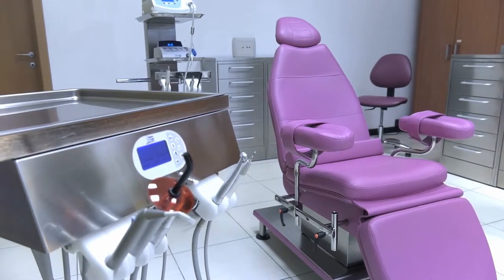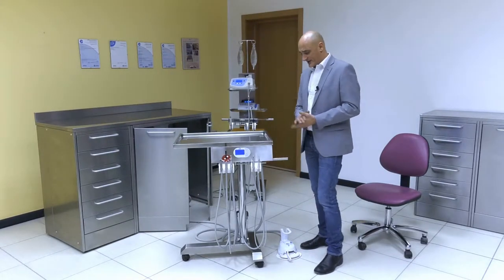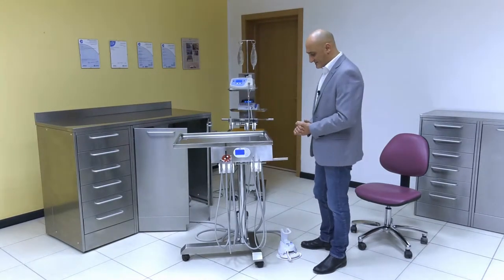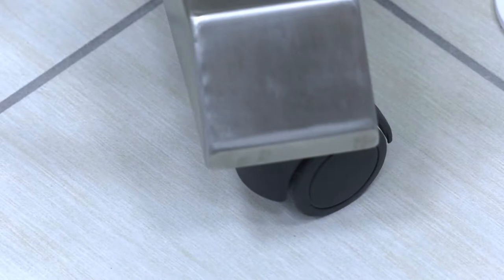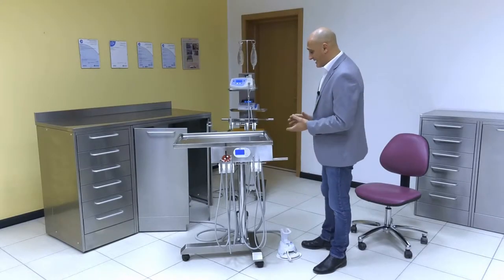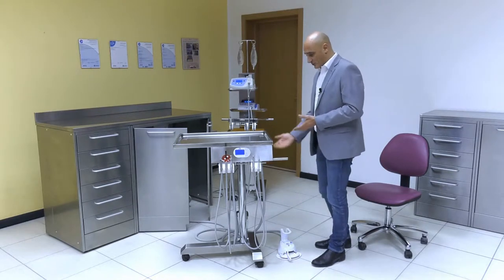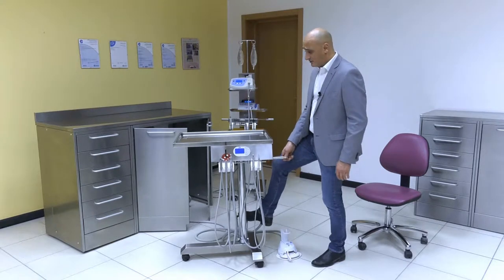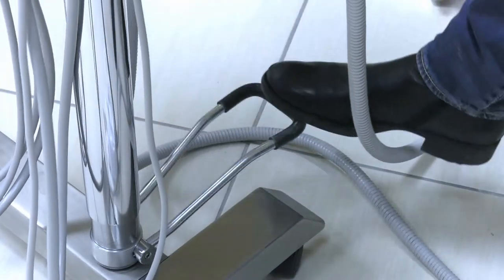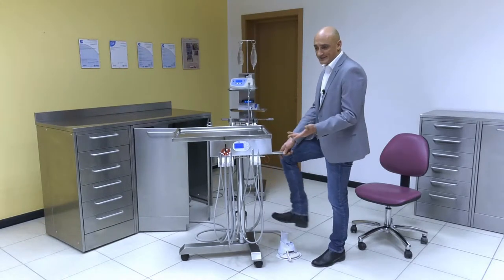Now, let's have a look at some of its features. Our Maykart is developed on a stainless steel radial frame fitted with wheels and a brake to secure it into position. The cart can be raised by operating a hydraulic pump, so you can raise the cart to reach any height and always be comfortable while performing your surgery.